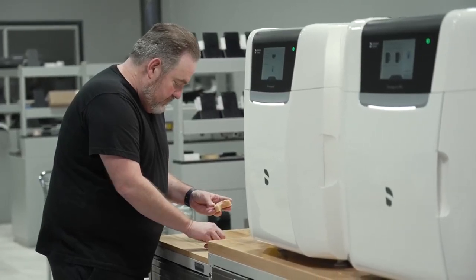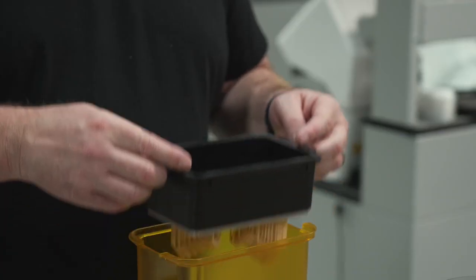When the Prime Print was introduced to my laboratory, I noticed right off the bat that there was something different about it — especially when it came to the workflow, the speed, and also the cleanliness of being able to print multiple materials without getting dirty.